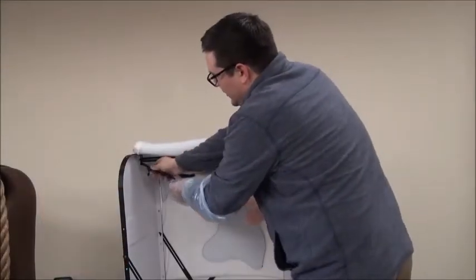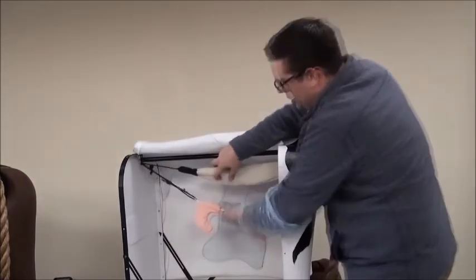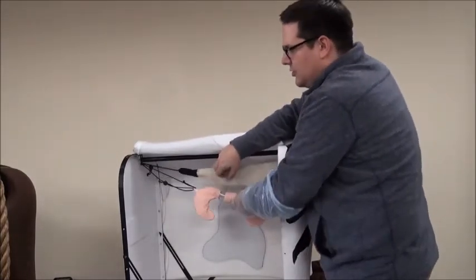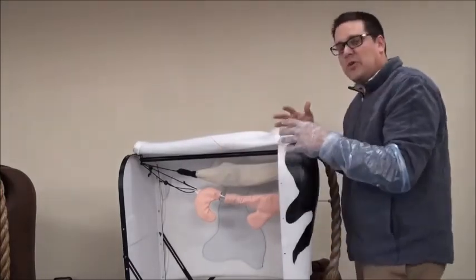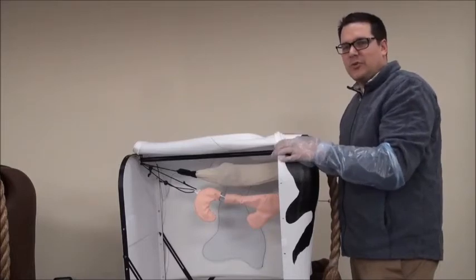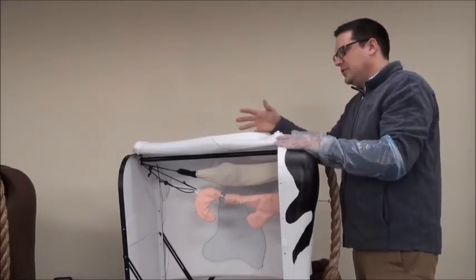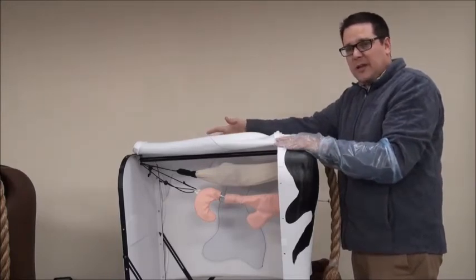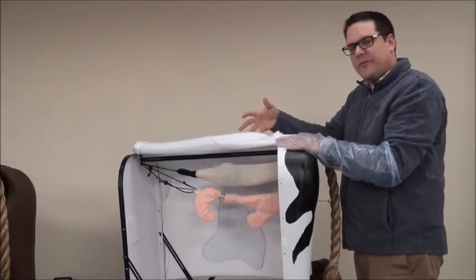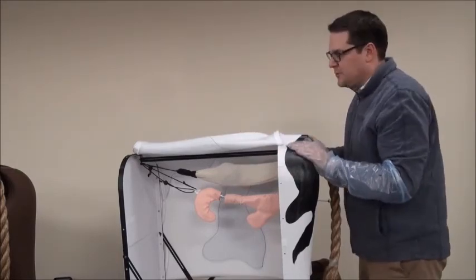We also have the ability to remove and reposition the uterus to different locations. So every single time, depending on what you want to simulate, it allows you to see and demonstrate different landmarks in this process — palpating the cervix and uterus, artificially inseminating, and showing all the different anatomical landmarks that are part of this product.